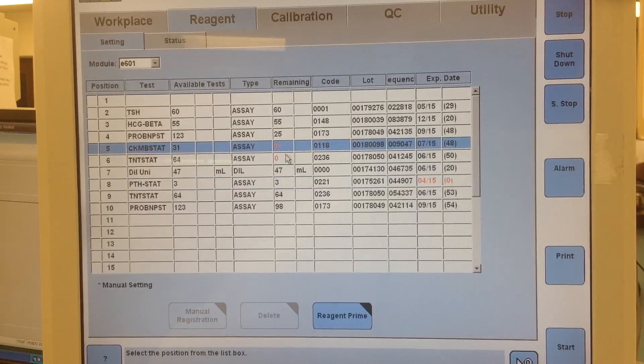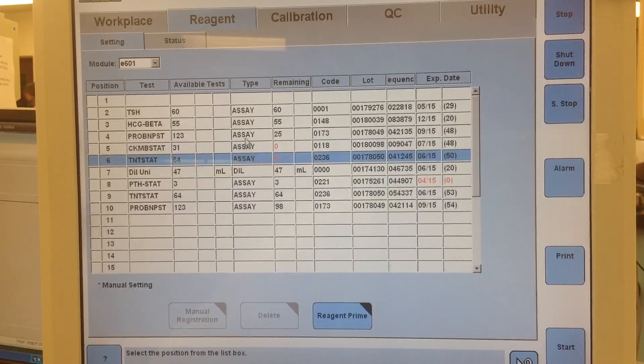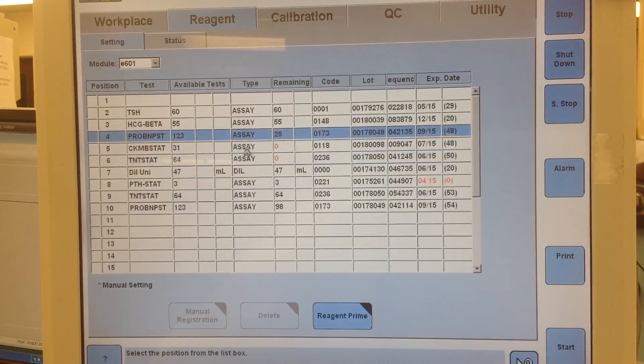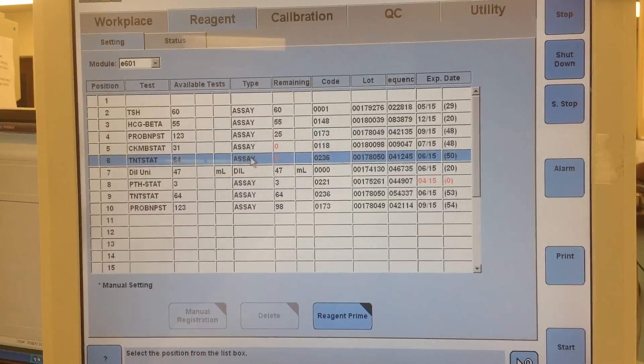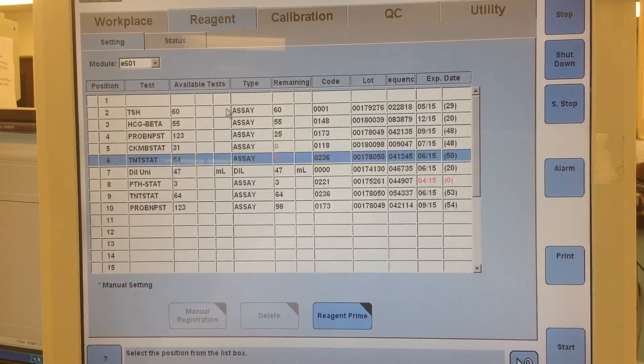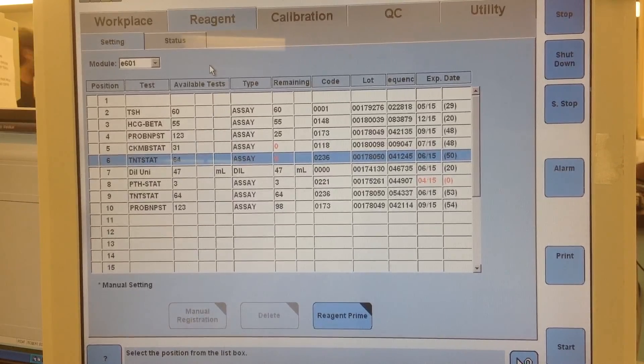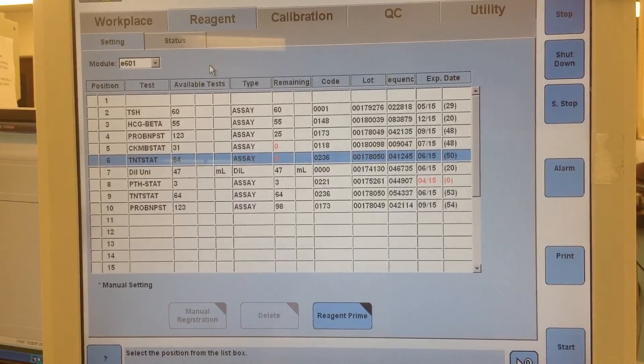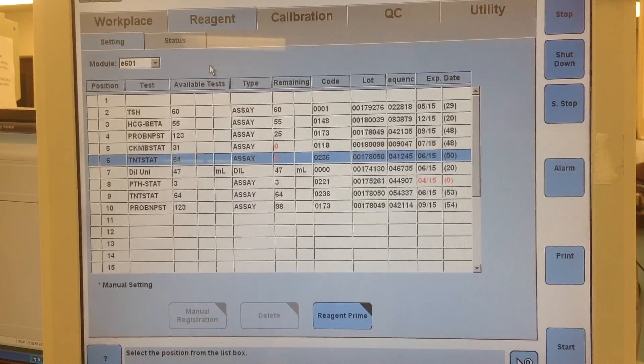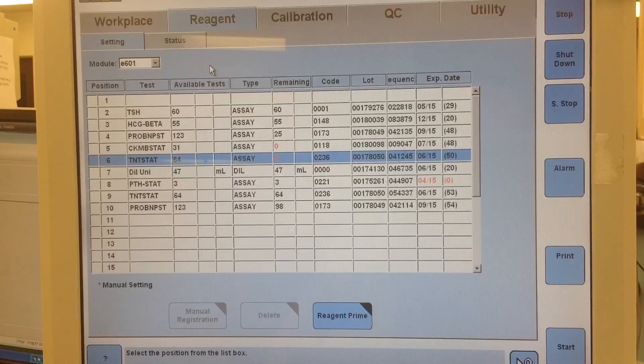See like these ones have zero, unfortunately it doesn't automatically dump so I have to remove those when I bring in a standby before I add on any new packs. And that's basically what I do and that's how I determine what I need to add.